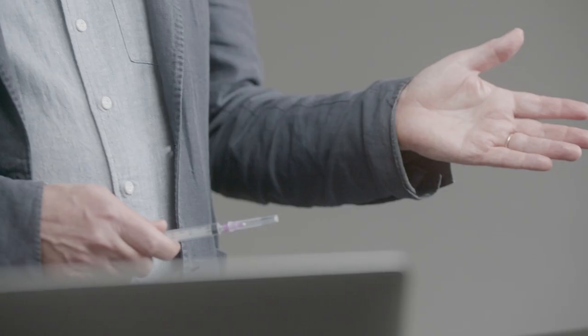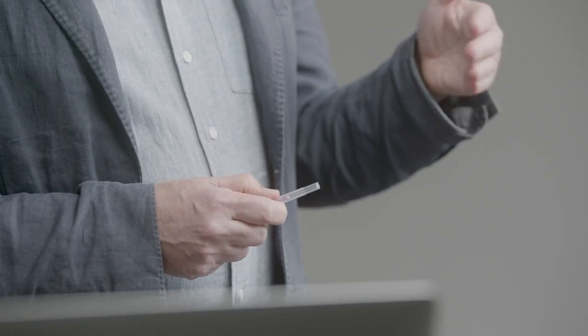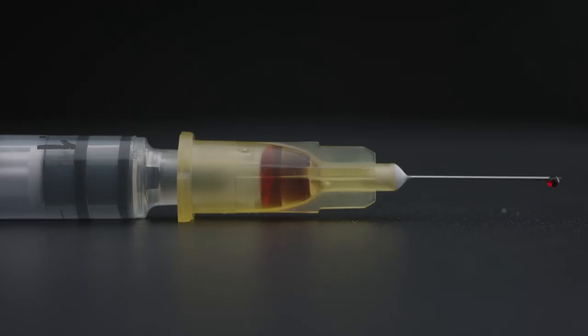Unfortunately it's not possible to just stop giving out high dead space syringes for detachable needles, because people need detachable needles either because the length or thickness of needle they require isn't available in a fixed needle syringe, or because they need to change the needle during the injecting process when it gets blunt while they're looking for veins.